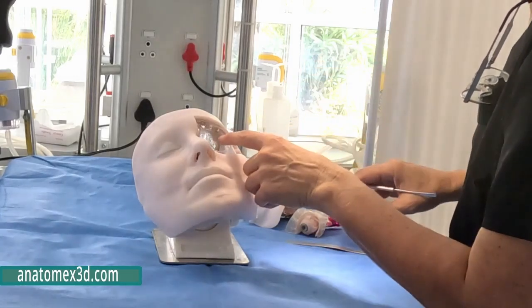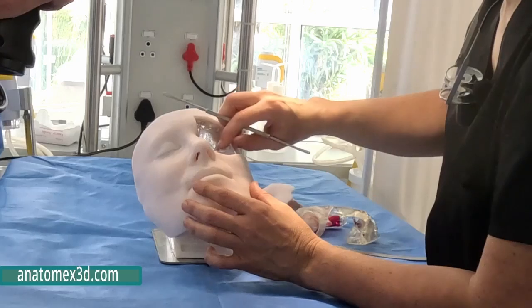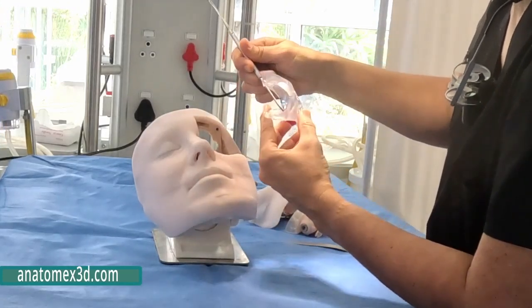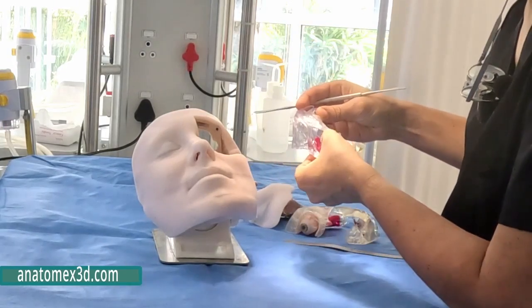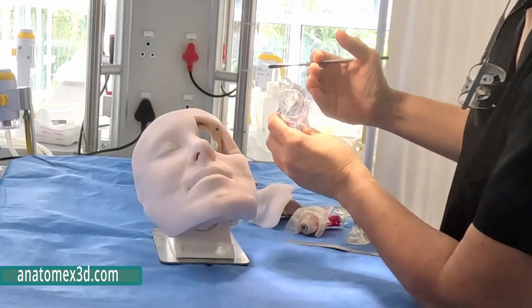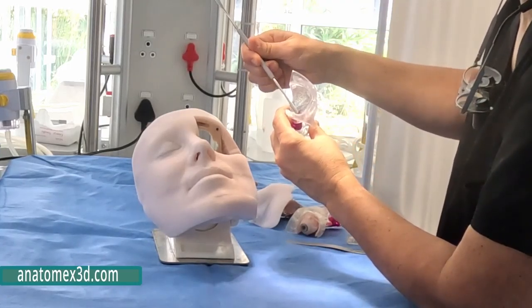But here in this specimen that's according to real DICOM images, you can see in the purple or red discoloration here, the sphenoid sinus. So we can see how the sphenoid has become aerated, and so well aerated, it extends so lateral that it actually pneumatizes the greater wing of the sphenoid.